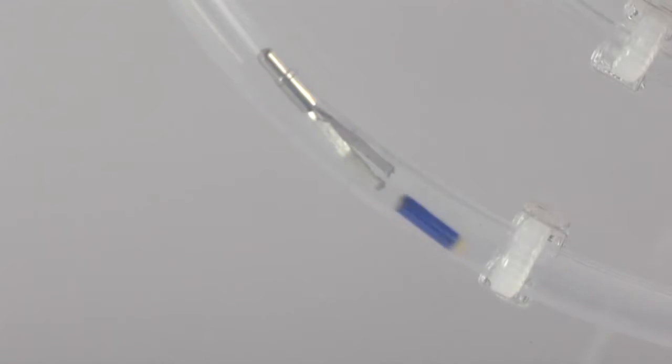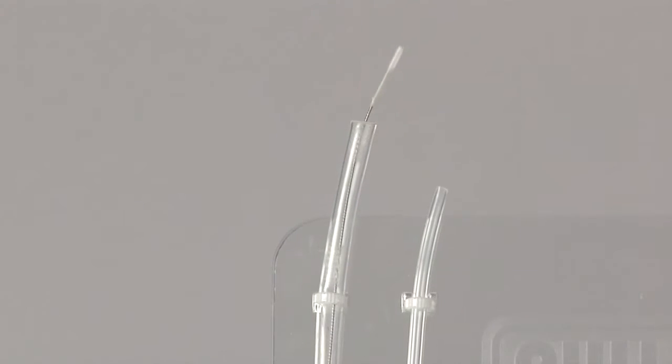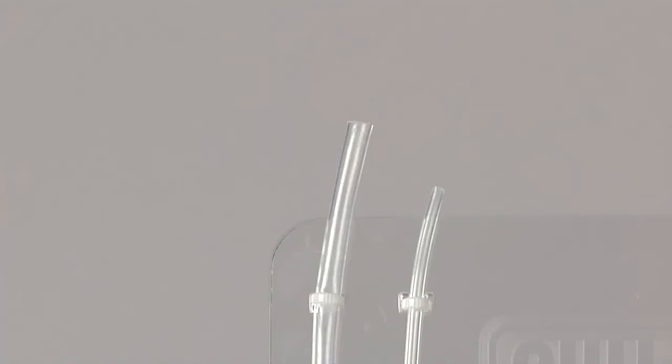Traditional cleaners can pass the obstruction with little or no resistance, leaving the technician with no indication that anything is stuck in the channel. Bristle brushes do not create a seal and are easily deflected by the obstruction as they pass.